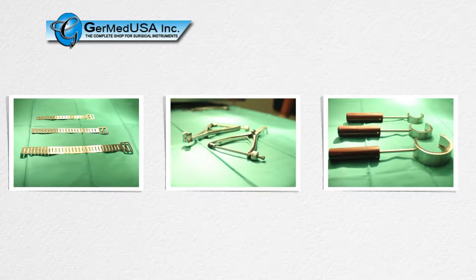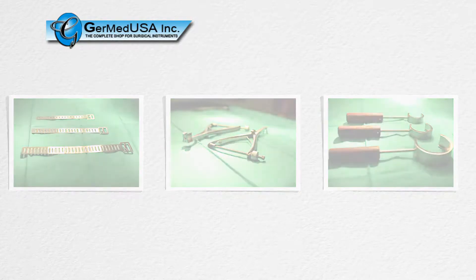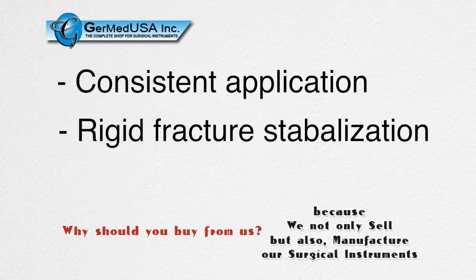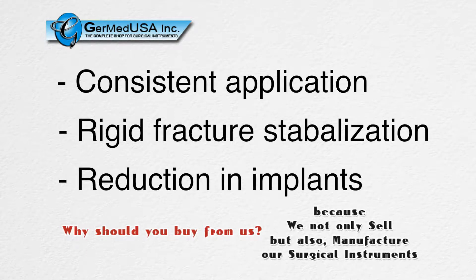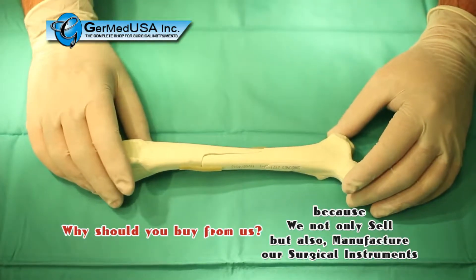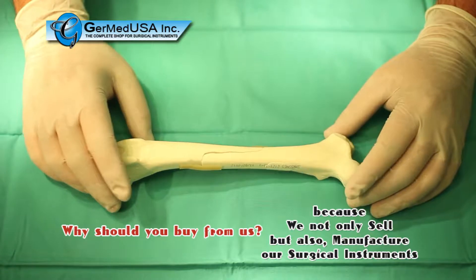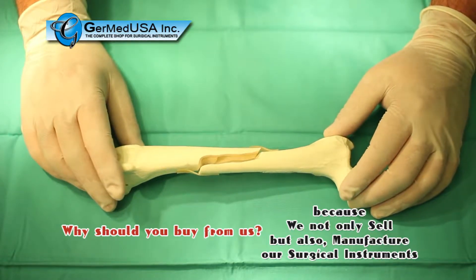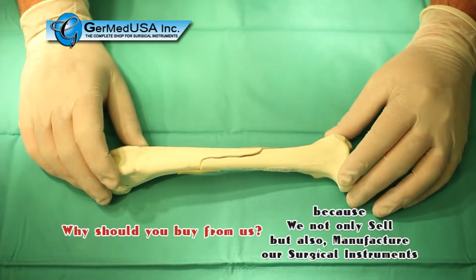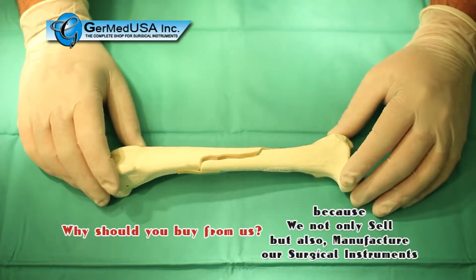This system is a more user-friendly approach to achieve more consistent application, a more rigid fracture stabilization, and a reduction in overall needed surgical implants. A typical application for the QuickLock Circlage Band System is illustrated here with a long oblique fracture of the canine femur. Options for fixation include an intramedullary pin or a bone plate using the QuickLock Circlage Band as a supplemental tool.